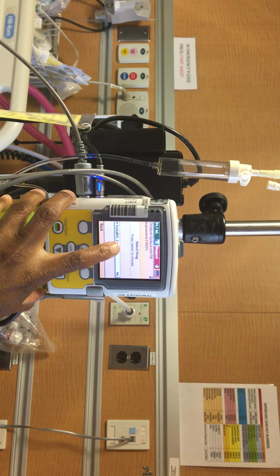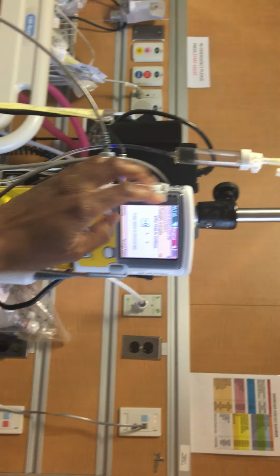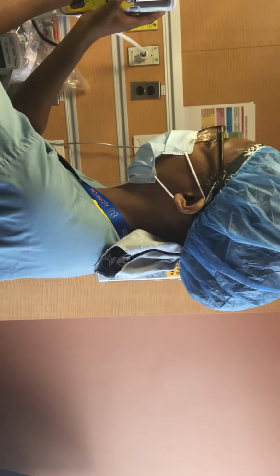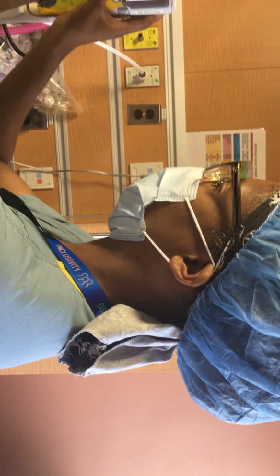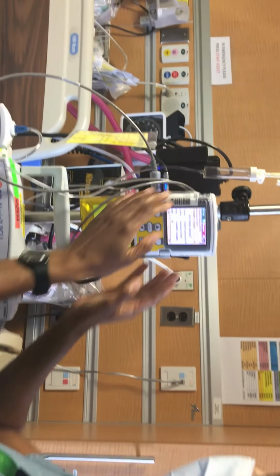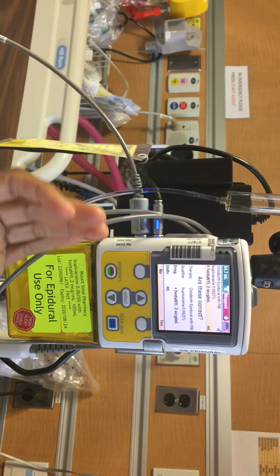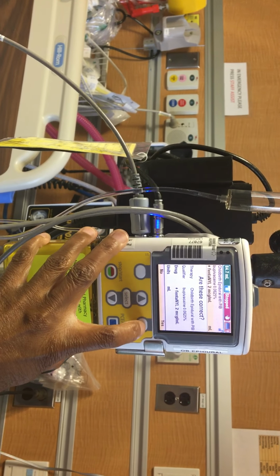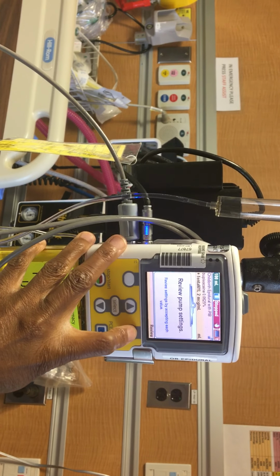And then the fentanyl is the addition that's in there. You would select that. And then there's a code, so we'll do that so that people don't have access to the pump. And then once you've put in your code, it's going to ask if it's correct, the type of program you want, the drugs that are in the program that you want, and you would say yes. And then it just kind of programs itself, and then you review the settings.